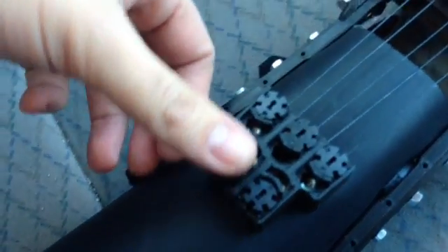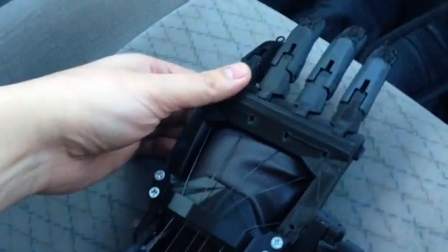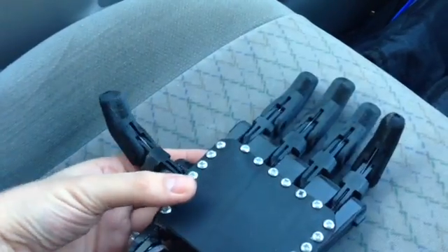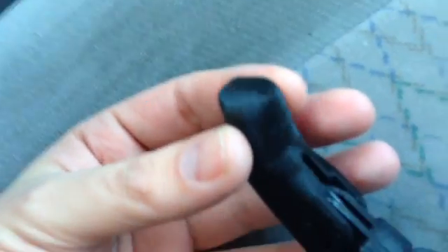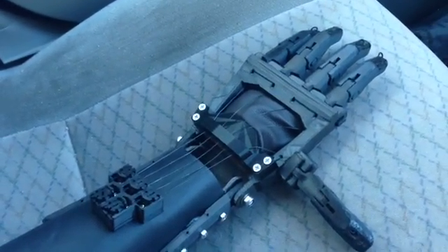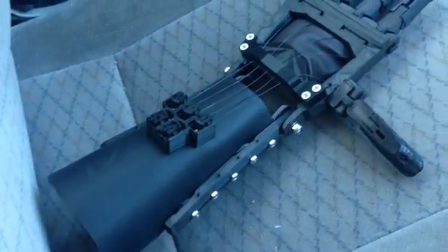These little things here — you twist these, and that adjusts the tension. But yeah, it's 3D printed. If you don't know what that is, Google '3D printing' — it's changing the way the world works, I think. It's bloody amazing. The detail — look, it looks like it's even got fingerprints. It's not, but it does look like it. I've never known anything like it. Like 15 years ago when Joe was born, I knew something would come. I thought they'd be able to transplant hands, which they can do. But this is bloody awesome, isn't it? And it looks quite cool too.